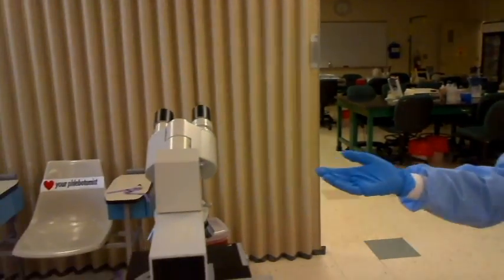There are four steps to perform the test. The first step is to take a blood sample from the patient. The second step is to make a smear. The third step is to stain with dyes. Then finally, we use a microscope to observe and count white blood cells.